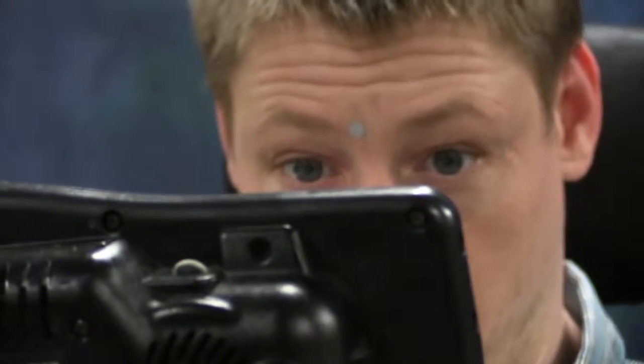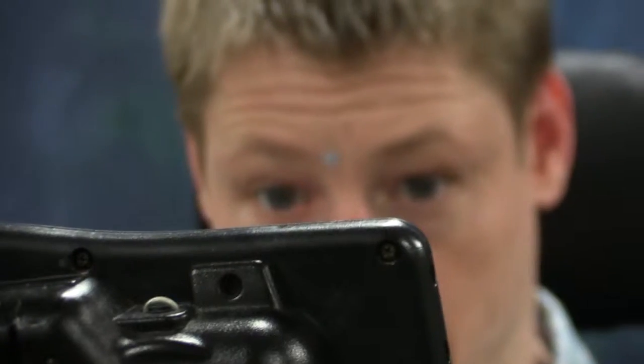The newer Tecla has its own rechargeable battery. Another nice thing about the newer one is that it's cross-platform. Cross-platform means you can use it with different kinds of devices, like an iPad or a Galaxy tablet. Anyway, I like how the Tecla works.